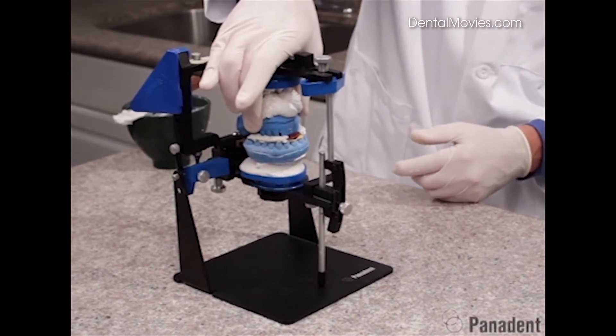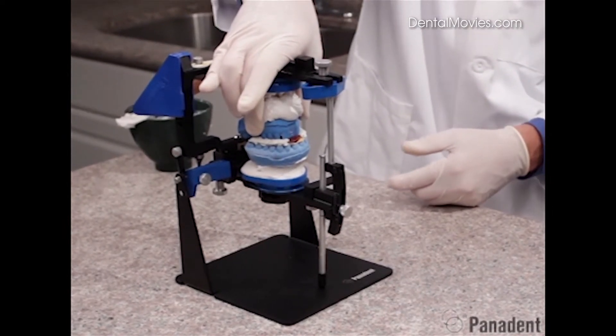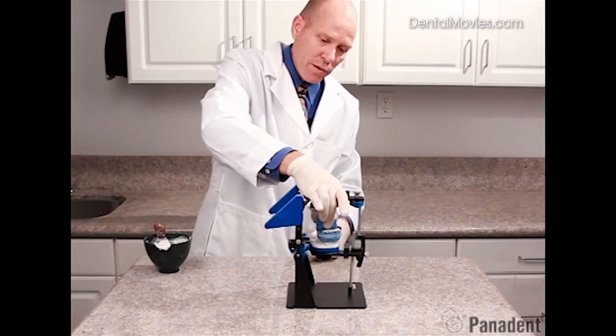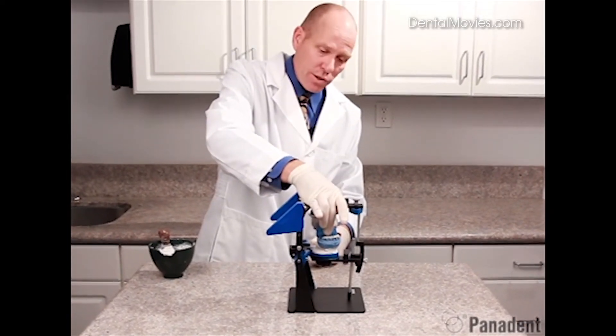And actually you can reach around and actually hold that lower cast into the interocclusal record for the initial set. So we'll go ahead and let this set at this time.